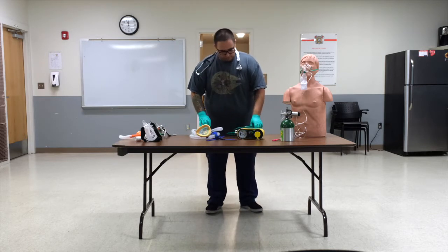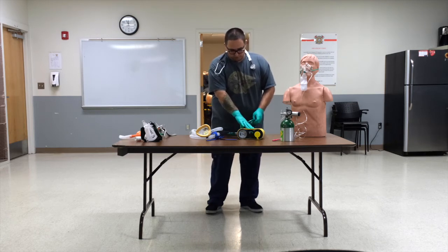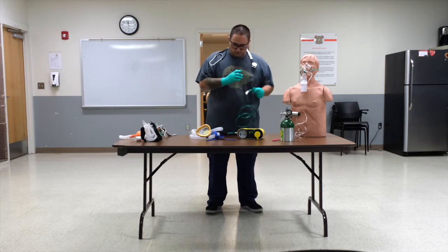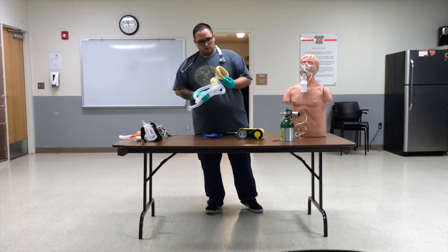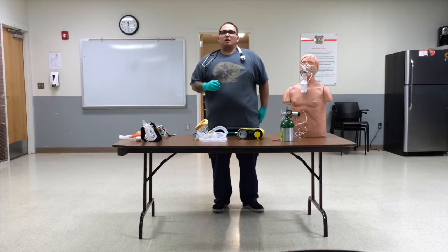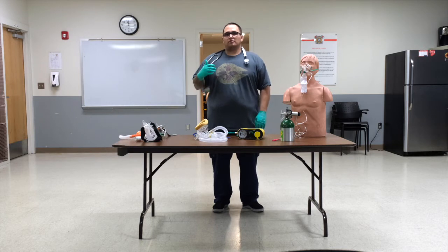So for the CPAP-O2, we have the actual device itself that generates our PEEP. We have a rather long set of oxygen hose. This will actually go to the bypass of the regulator, which I'll show you in a sec. And we have the disposable CPAP circuit with masks. Masks come in small, medium, and large sizes as well. For this one, we're going to be using the medium. Make sure that we're also doing appropriate monitoring for the patient, reading a full set of vitals, making sure that we have them on the end-tidal, and keep monitoring their SpO2.